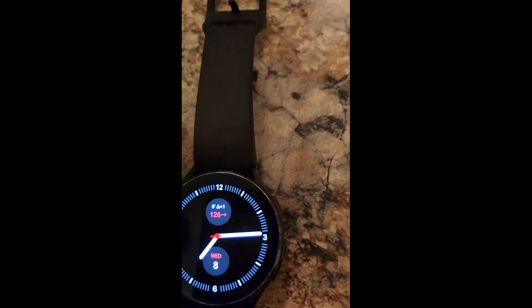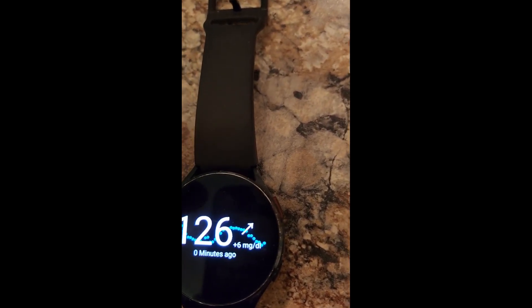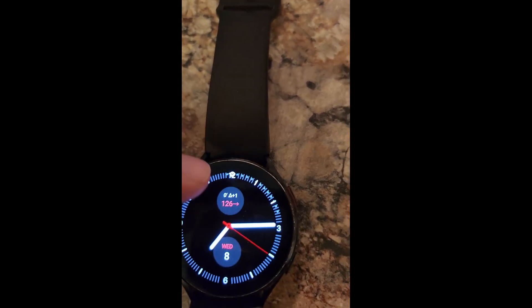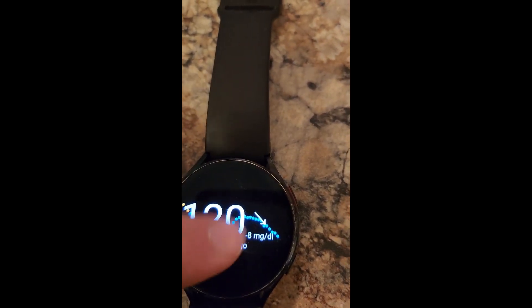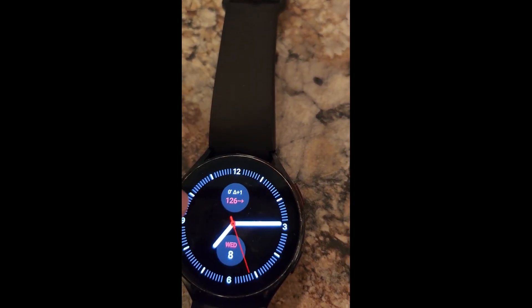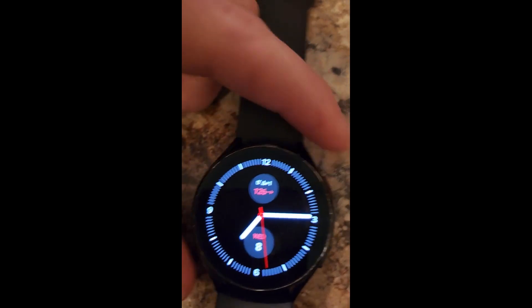This one I know I can always trust. I always have the wearable widget to the right too, and as you can see it actually updated here before it updated to the wearable widget, so that's cool. I feel really good about this number all the time — I know it's up to date.